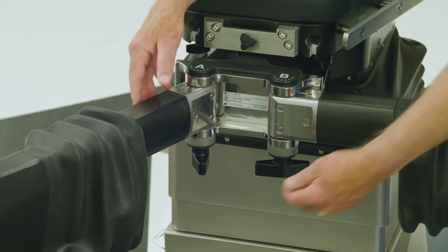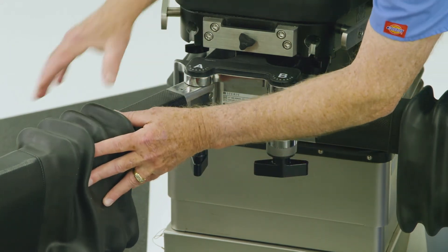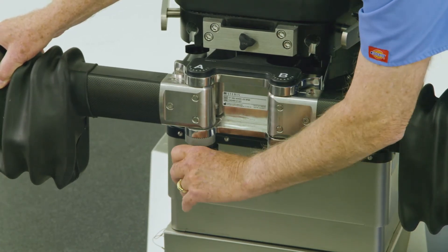To position the abductor spars for a tibia fibula position for an operative left leg procedure, begin by loosening the knob below the left side A rosette, and set the A joint to the X position, then relock the A rosette handle.